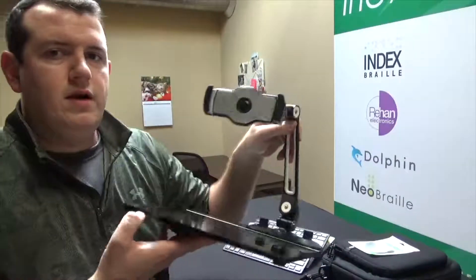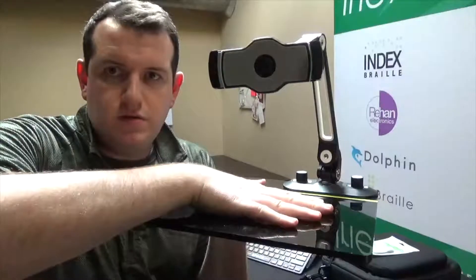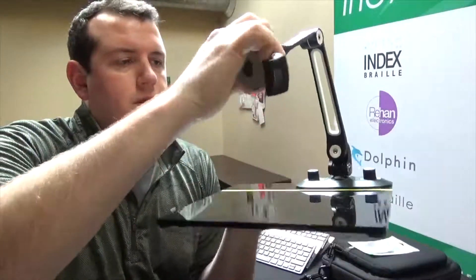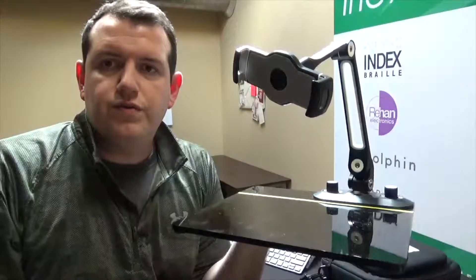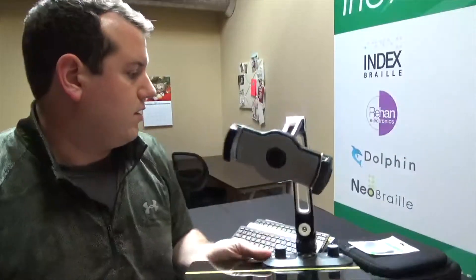And then our final stand option here just has a flatbed surface. You can put your documents underneath here. Another little arm here that swivels, moves back and forth, and is totally adjustable. So that is our final stand option.